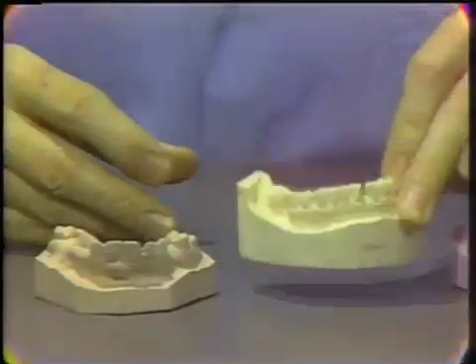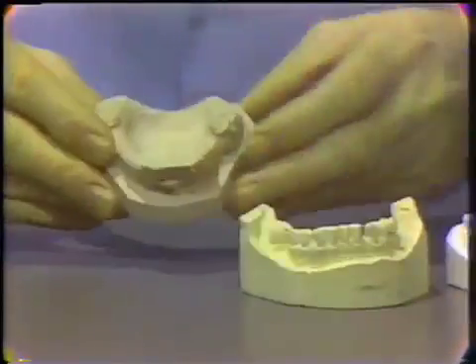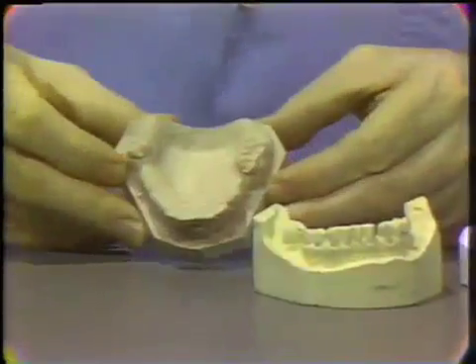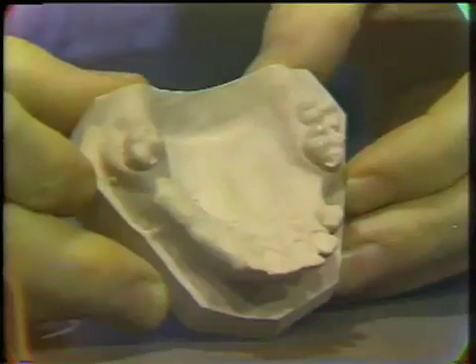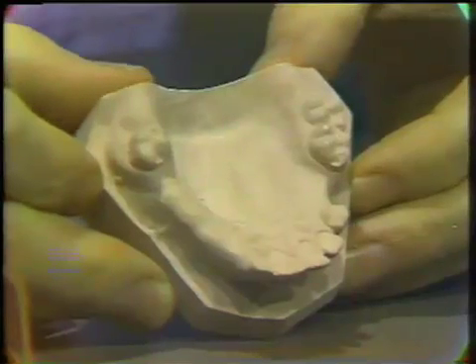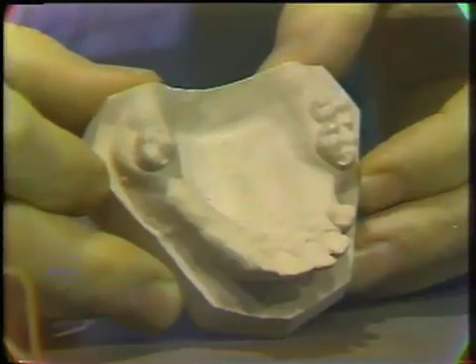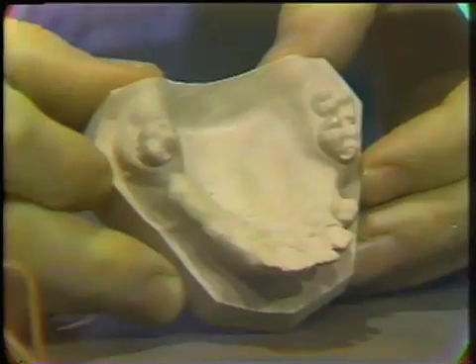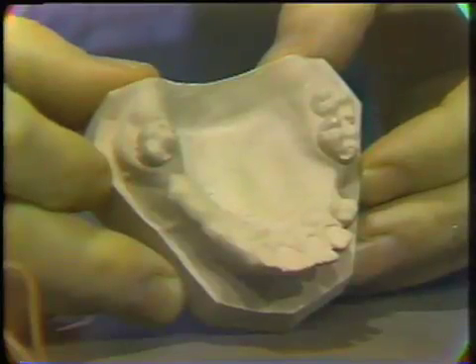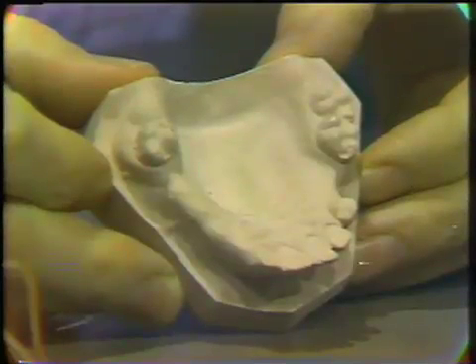A third gypsum product is called improved dental stone, or densite. This particular material is rather pale pink, but there's an additional product called duroc, which is greenish in color.